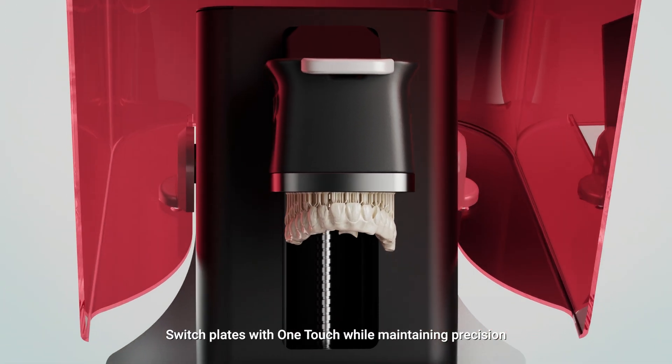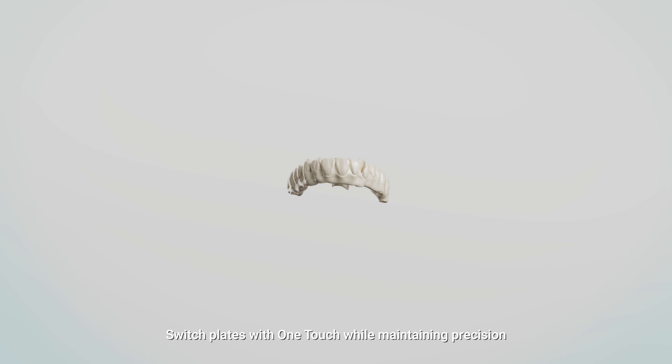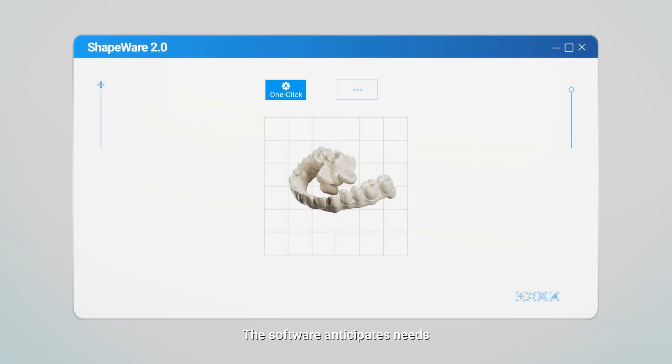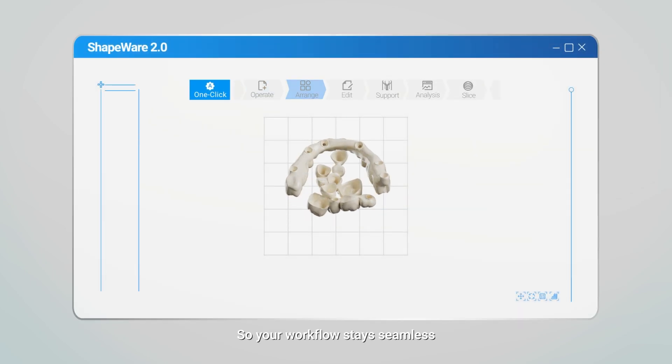Smaller cases, switch plates with one touch while maintaining precision. The software anticipates needs, so your workflow stays seamless.